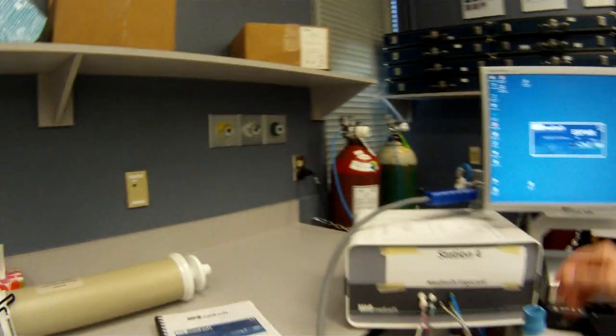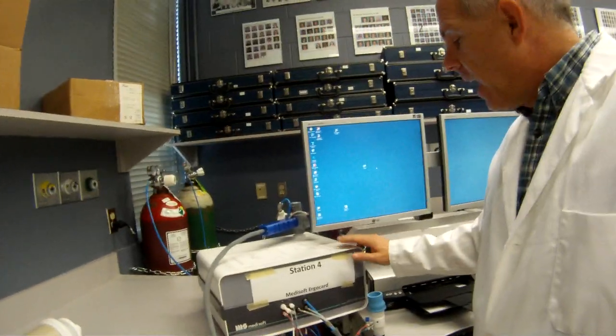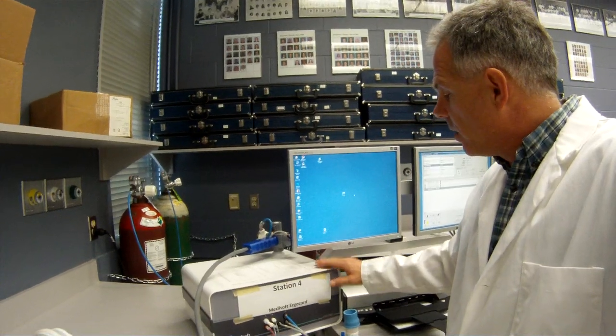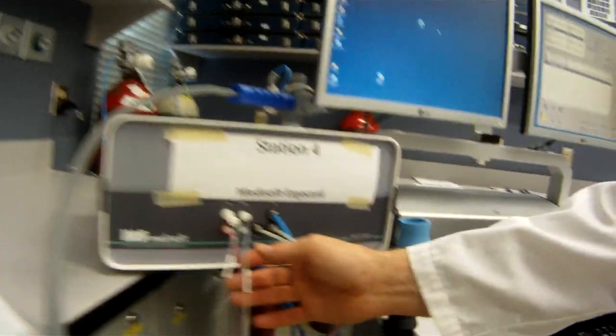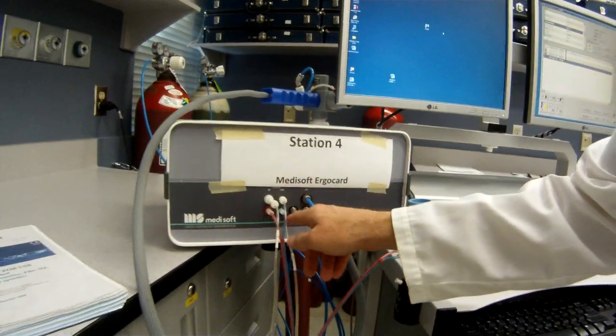Now while that's warming up, I'm going to show you that here is our basic gas analyzing unit. That's what the device uses to analyze all the exhale gases. Get right in here you can see that it's got set up here for different gases coming in and we'll talk about that a little bit more.